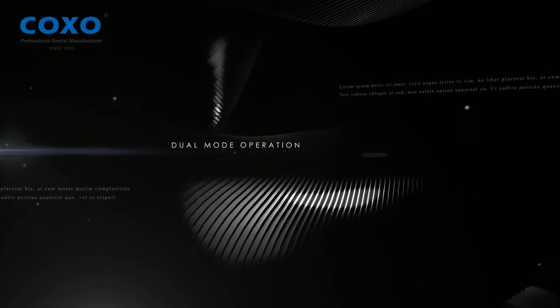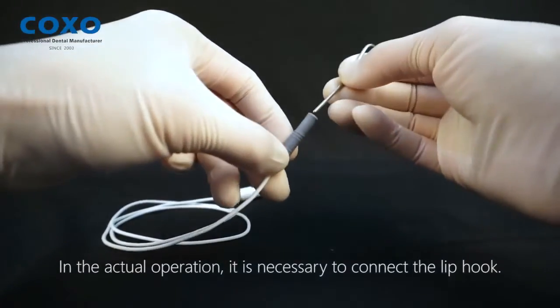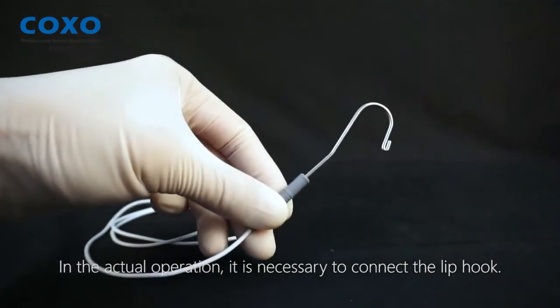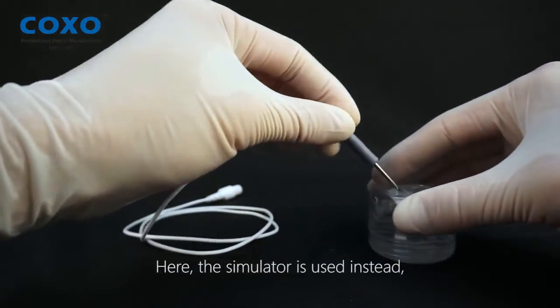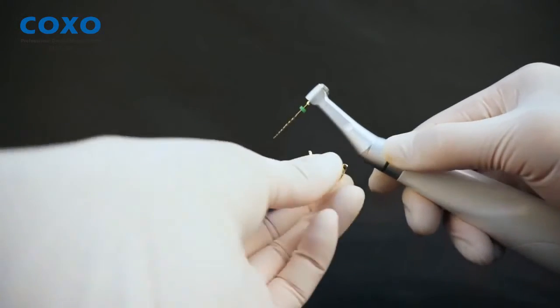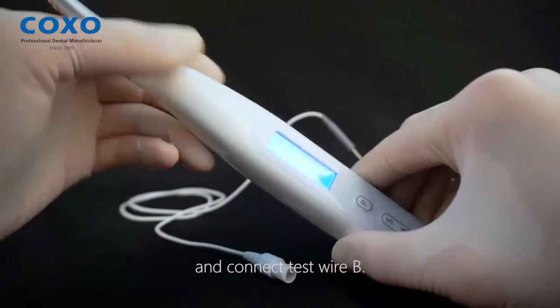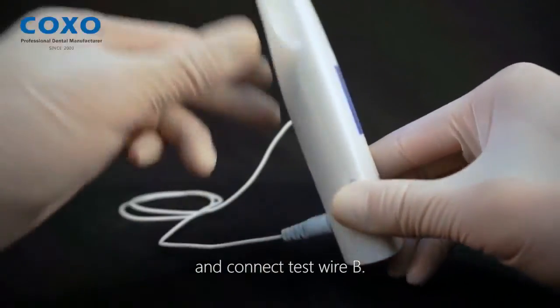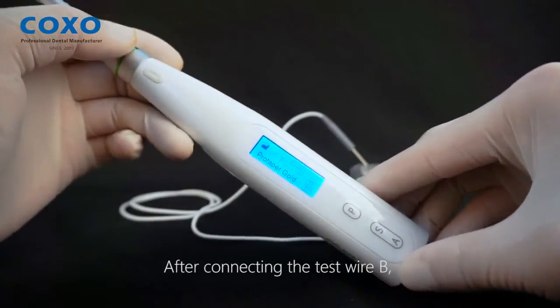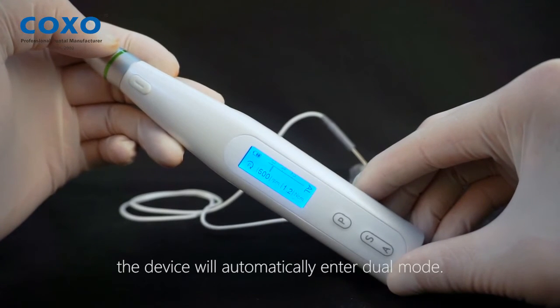Duo mode operation. In actual operation, it is necessary to connect the lip clip; here the simulator is used instead. Install the contra-angle holder and connect test wire B. After connecting test wire B, the device will automatically enter dual mode.